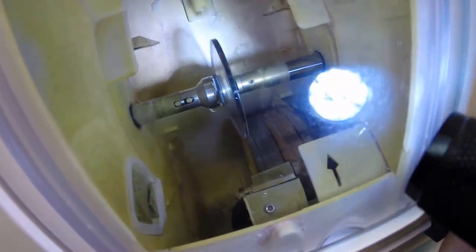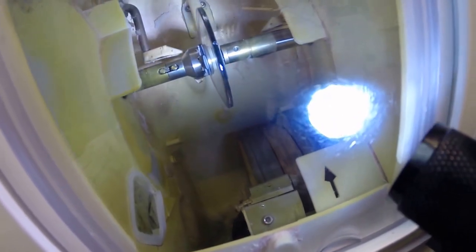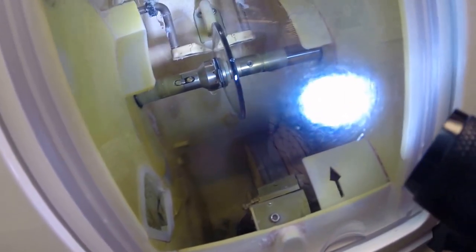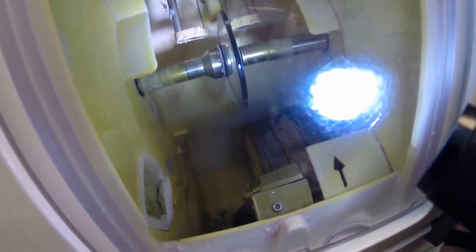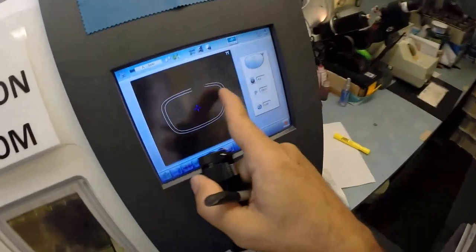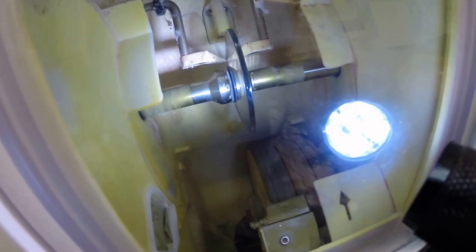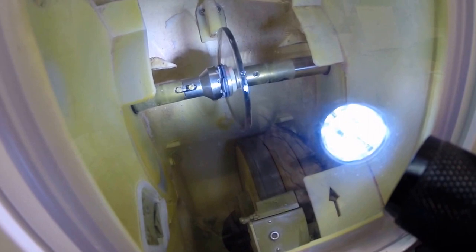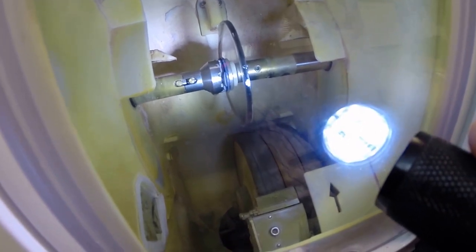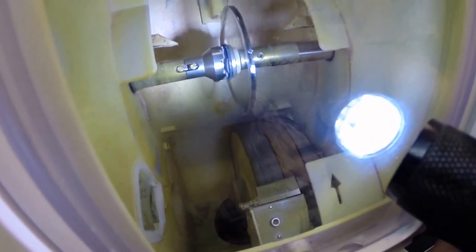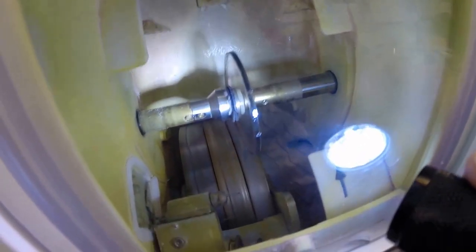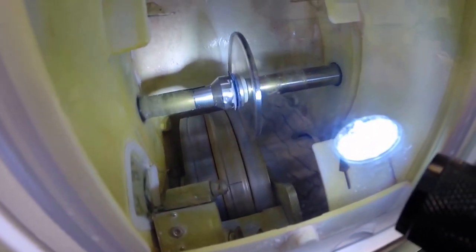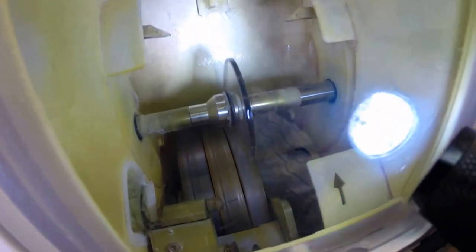And then the lens is going to be traced by two styluses. It's going to measure the lens, make sure it's large enough to fit into the frame. And it's actually going on, you can see, as it traces. And it's actually going to measure twice. The old carpenter is saying, measure twice, cut once. It's measuring the thickness of the lens at every point to know exactly and precisely where to place the bevel so you have the least amount of edge thickness showing. Now with your prescription, you have very little edge thickness anyway. But I cut some very strong lenses and it becomes more critical later.